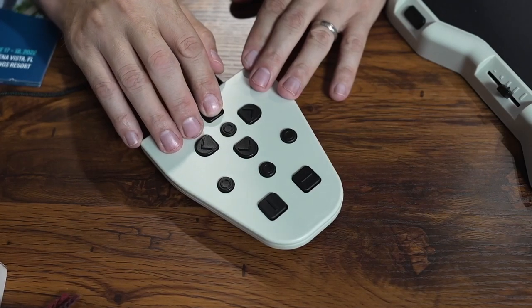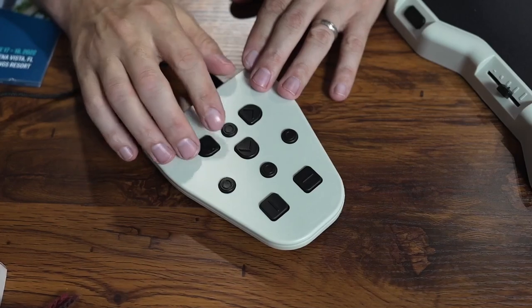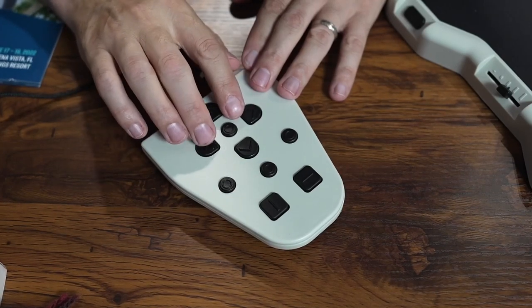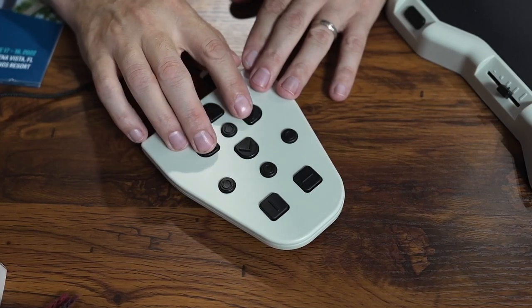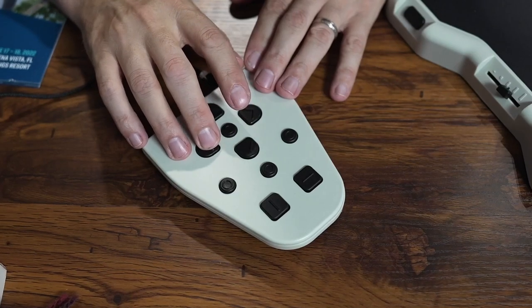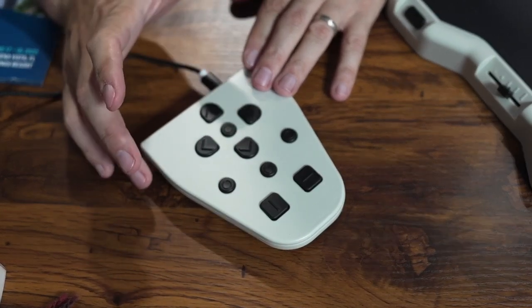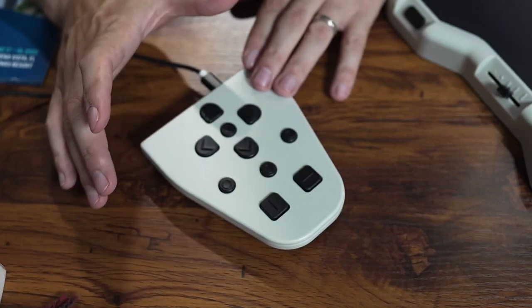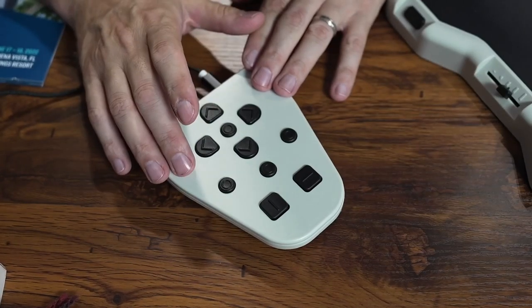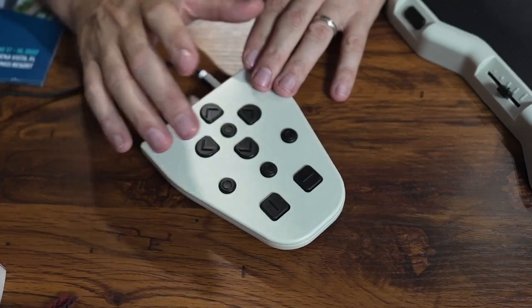Once I've selected word-level navigation, the left and right buttons navigate through words. For example, it reads out individual words: "cures," "we," "featuring," "research," "updates." This is great if you're listening to a document that has a web page, email address, or phone number on it and you need to get that information very precisely. You can use this keypad for that. There's also a button that simply spells out whatever word you're currently on, letter by letter.